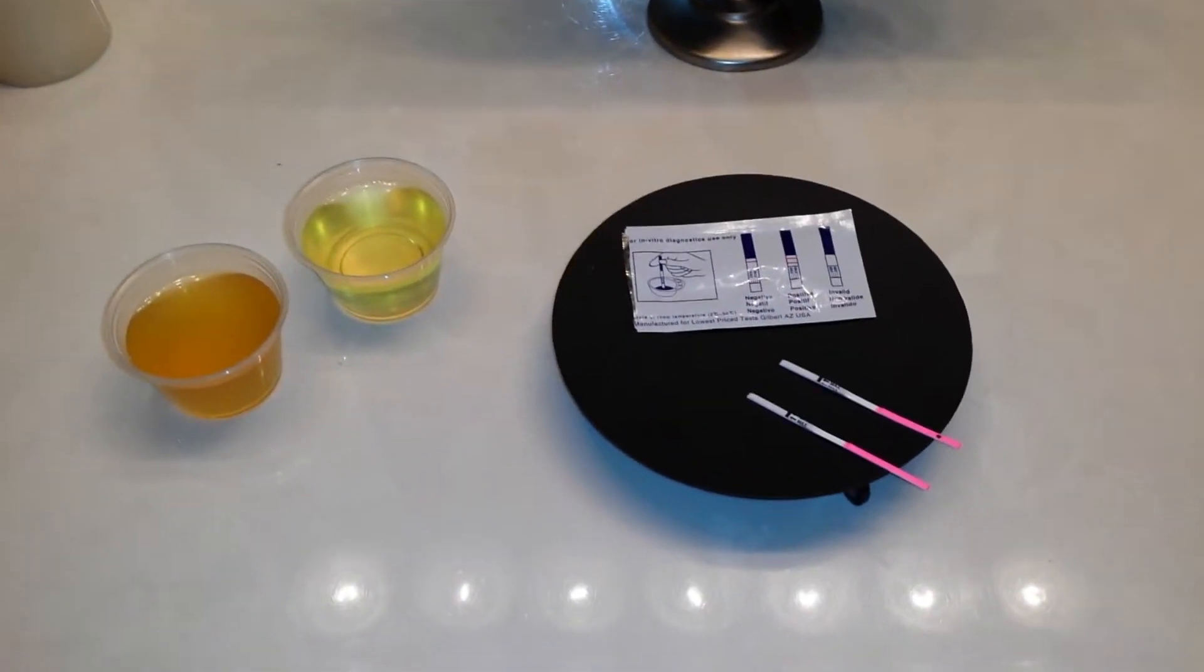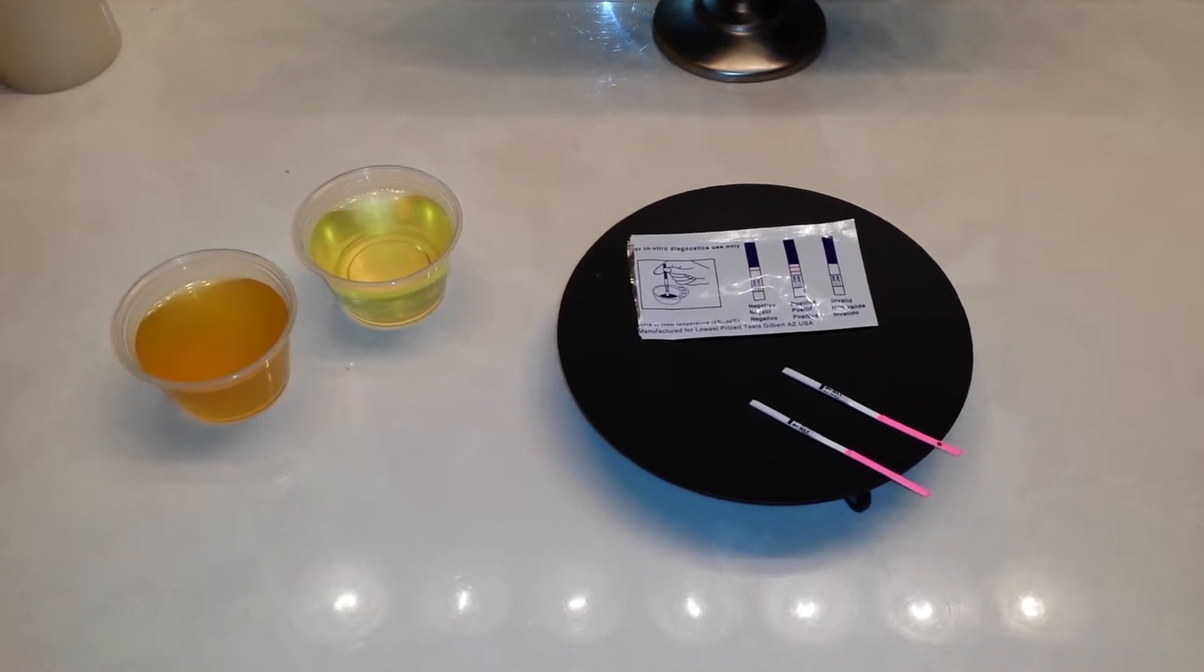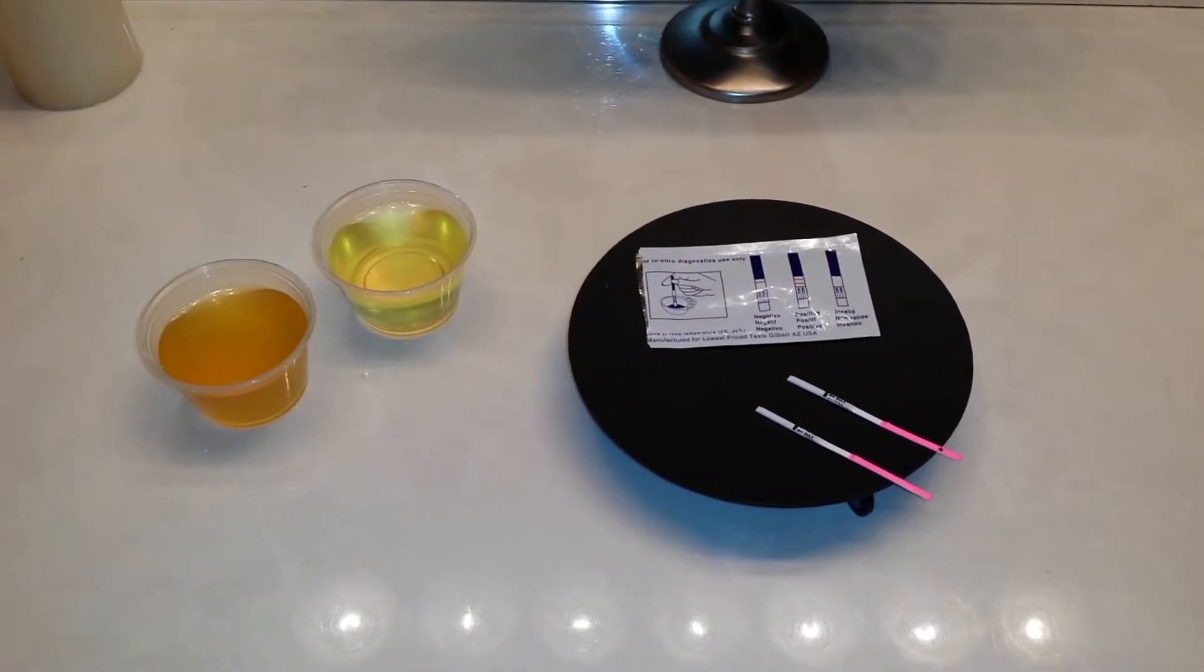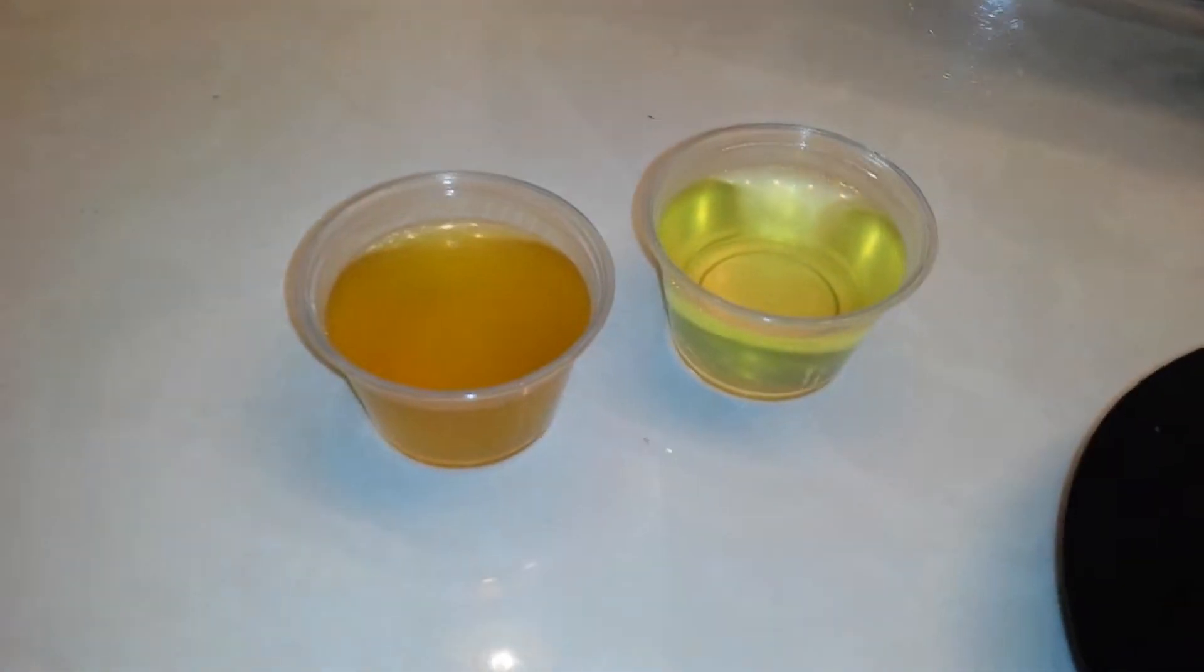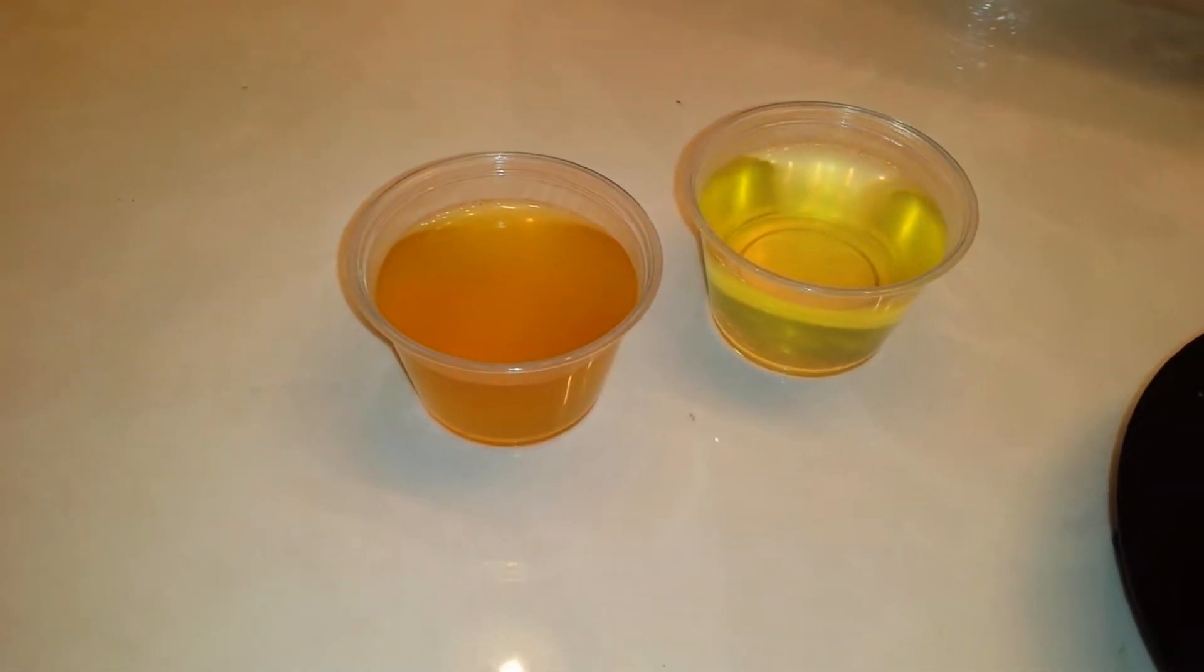Hi everyone! I hope you're having a very blessed day. I decided to do an experiment today just to show you the difference again between diluted urine and concentrated urine.